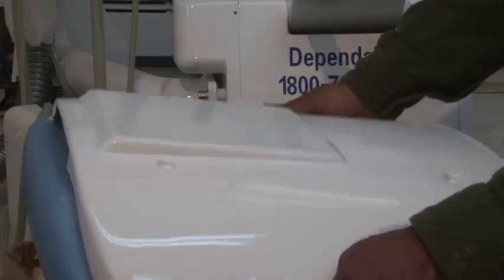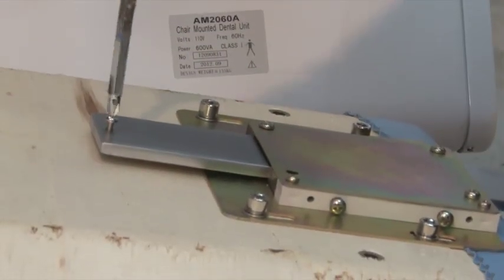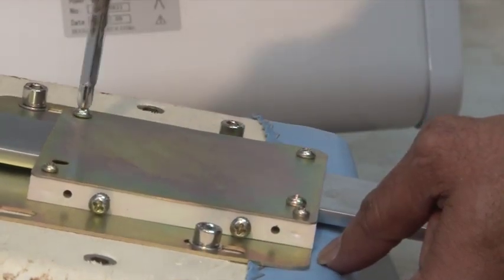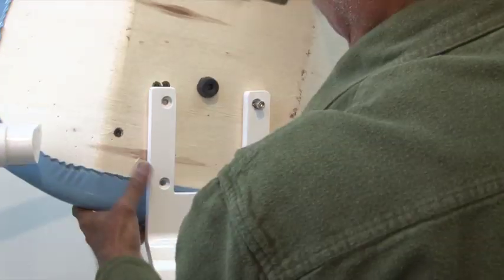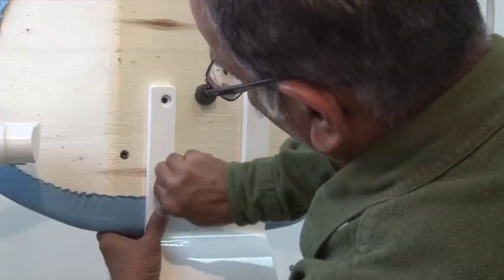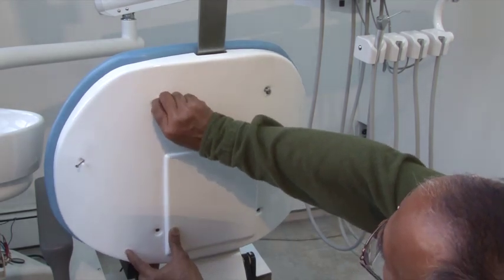Now remove all six screws in the seat back. Install the headrest and tighten the safety screw so that the headrest will not come out. You can also tighten the four screws to restrict the movement of the headrest. Using the screws provided, attach the seat back to the backrest holder. Then place the seat back cover and tighten the screws.